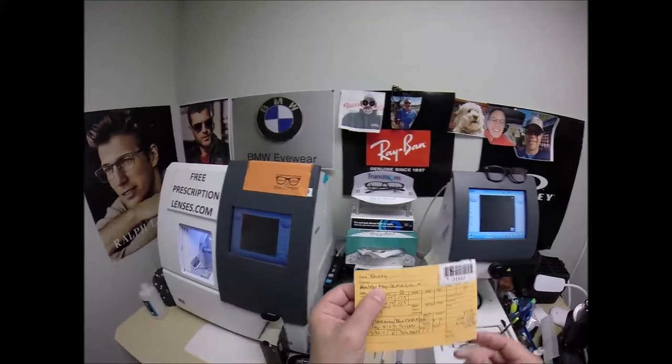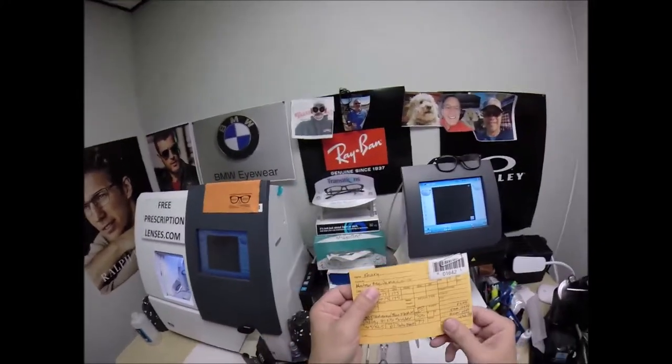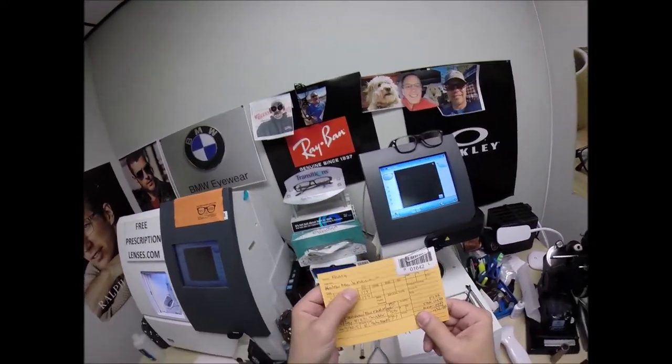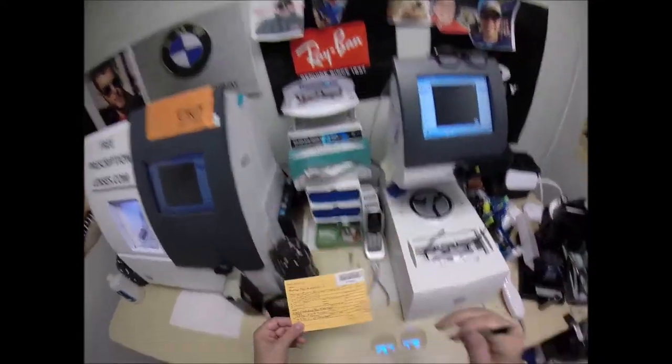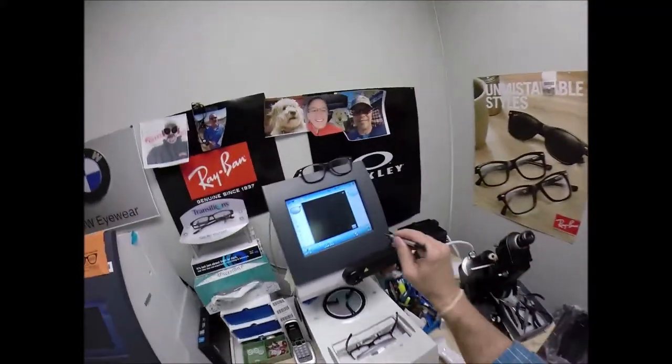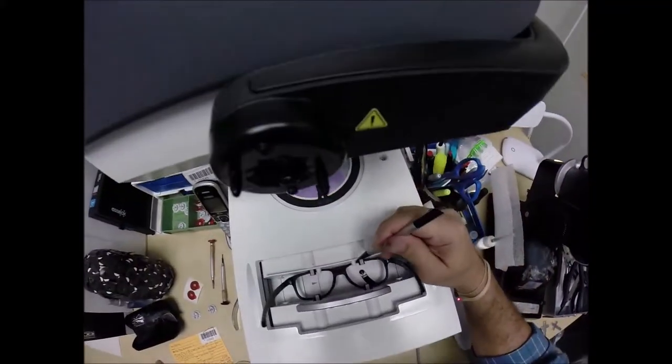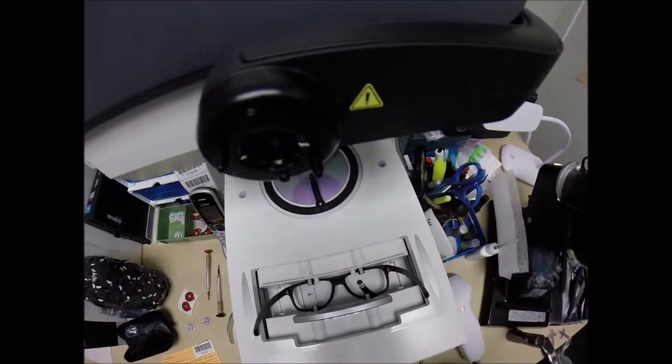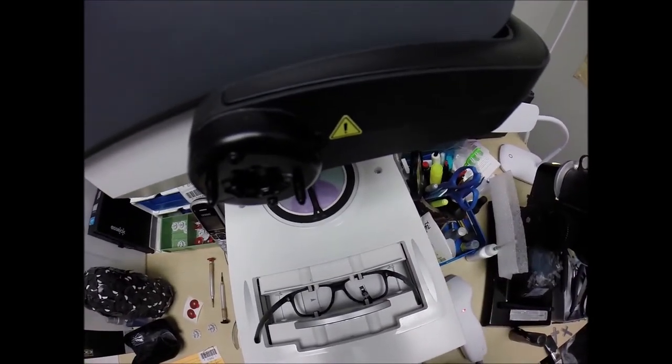Or actually in his case, right to his boat. Because he spends so much time on the water there in Montego Bay, Jamaica. But that way you won't have to mail the frame back to me. I can send you just the lenses already cut to this shape. So, I'm going to hit start. A little stylus is going to pop up and go around and trace the inside bevel of the right side of the frame before doing the same thing on the left.